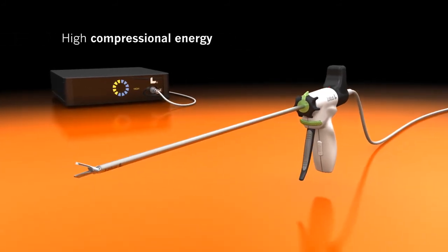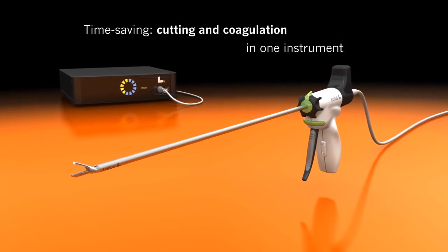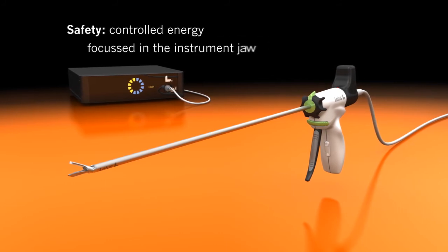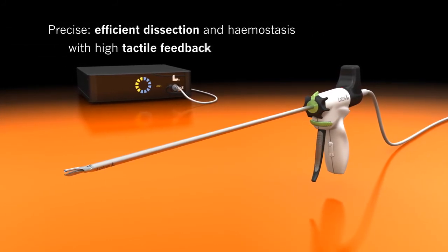Lotus delivers high compressional energy with current-free cutting and coagulation, avoids energy dissipation at the tip of the instrument, and gives you control of the dissection speed through high tactile feedback.